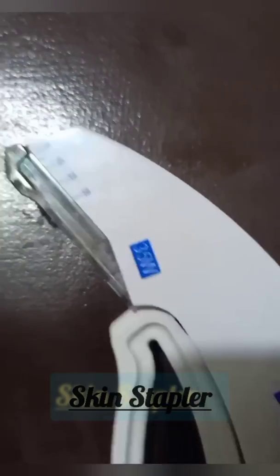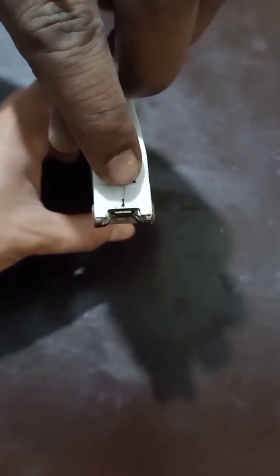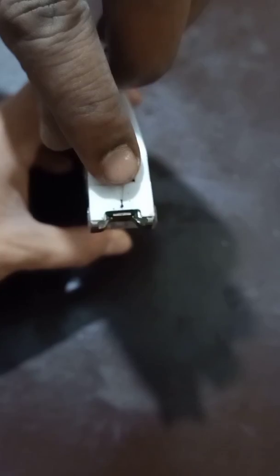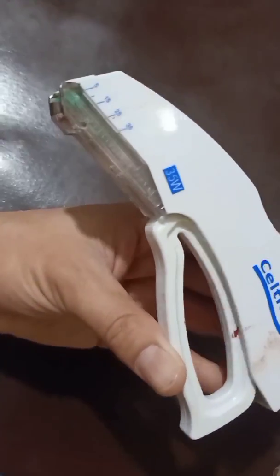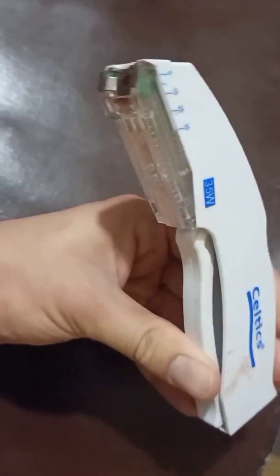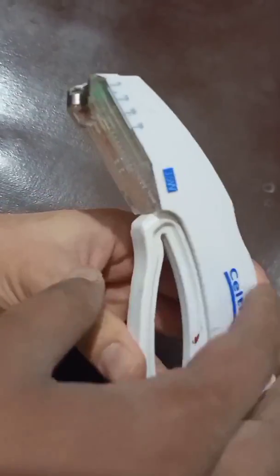This is the skin stapler, used to close the skin when you are not using sutures. The numbers indicate the number of staples. You place the arrow in the middle of the incision, and after approximation you press this area to staple.